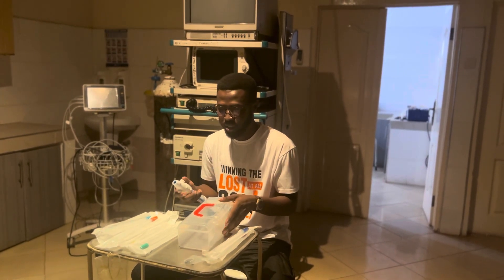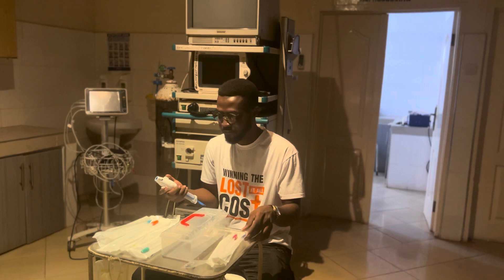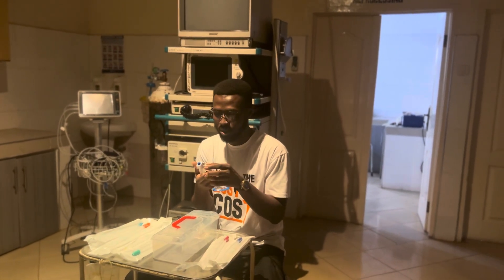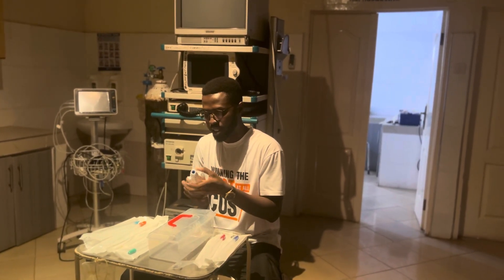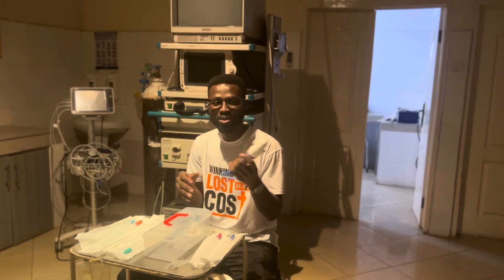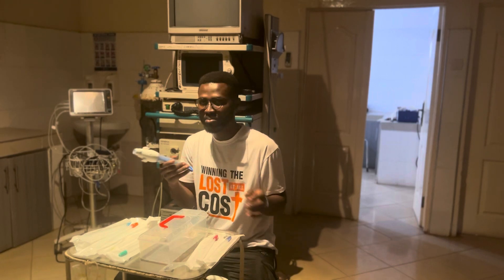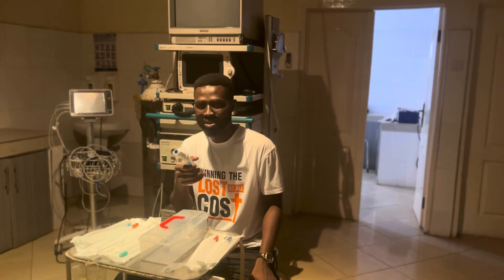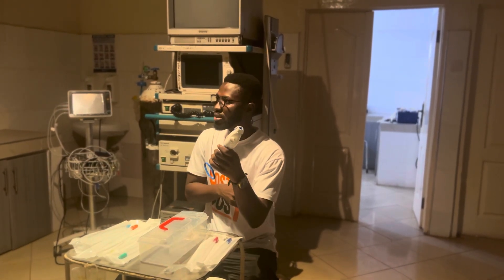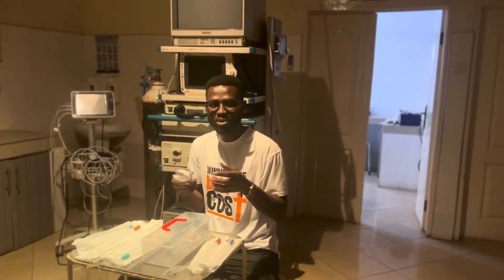Some of the things we should be expecting to see if we are presented with this. For the MCQ paper, this is not something you focus on so much, except maybe finding out the pregnancy gestation and what gestation you would use this — first trimester evacuations and all that.